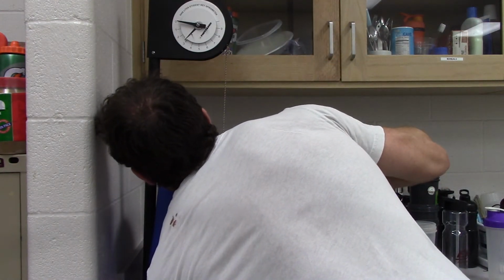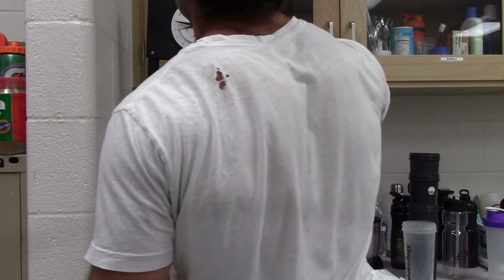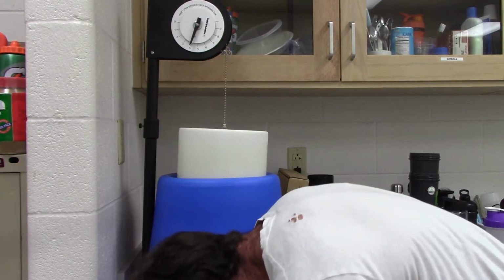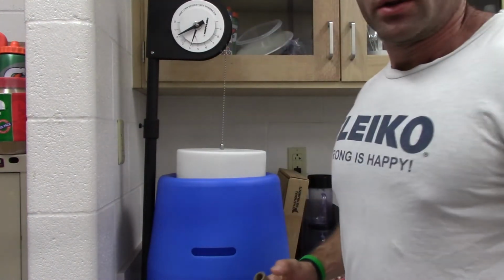So I'm going to pull the stopper out again, make sure we get all the air out of the chamber, put that stopper back in there to keep all that air trapped inside, reset our dial, and then I'm going to take the biggest breath in I can. And that brought me to 4.1 liters.